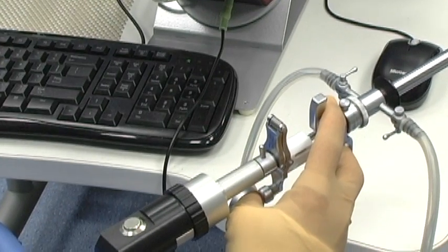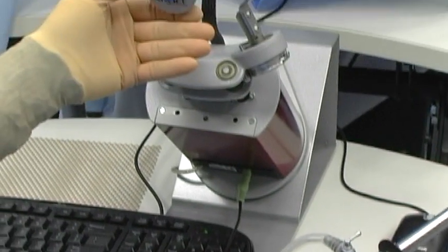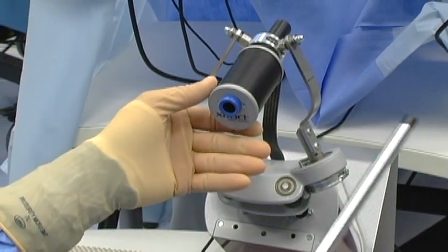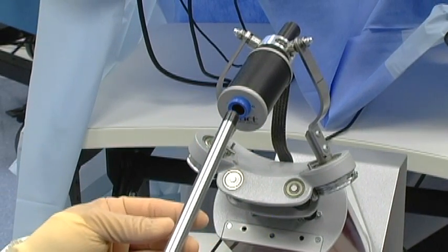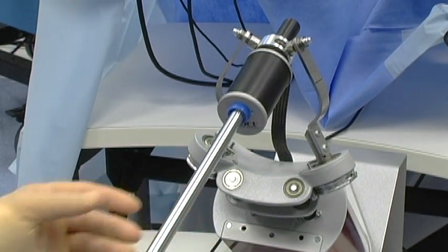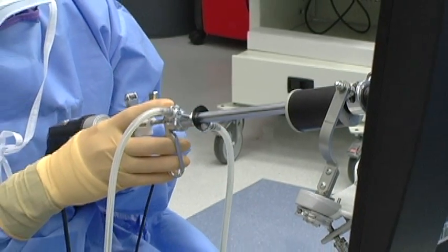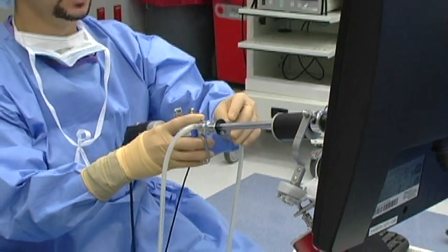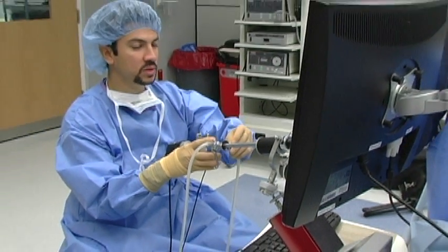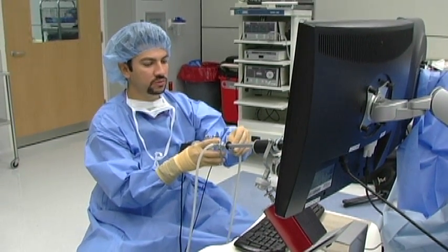To get started, you basically bring the hysteroscope into the endocervical canal and introduce it. Once we're in, the screen will prompt you to start managing your fluids on your own.